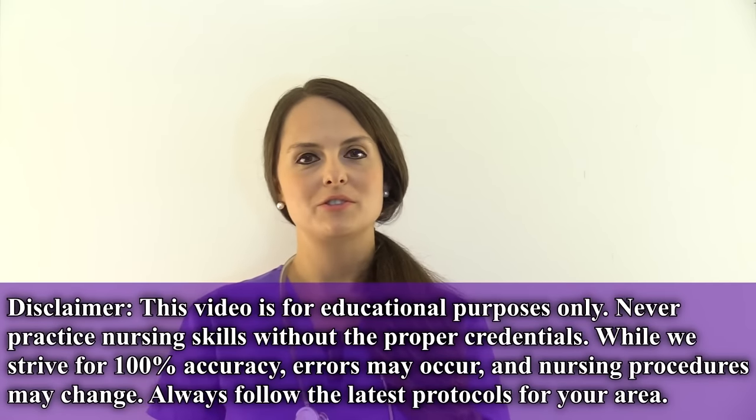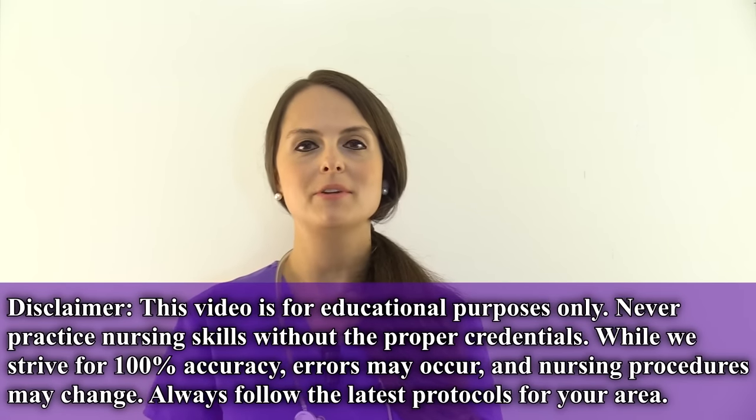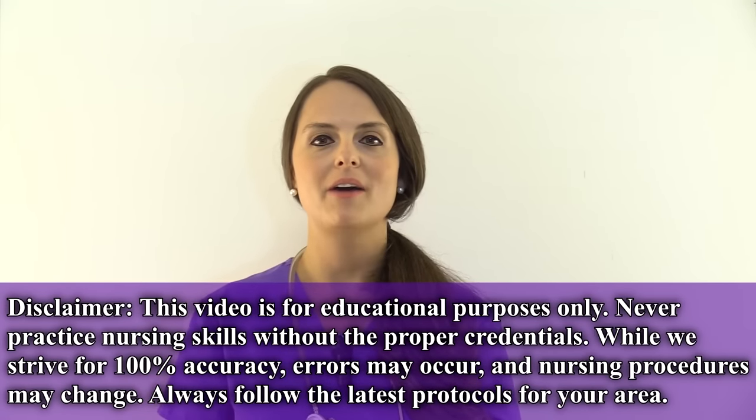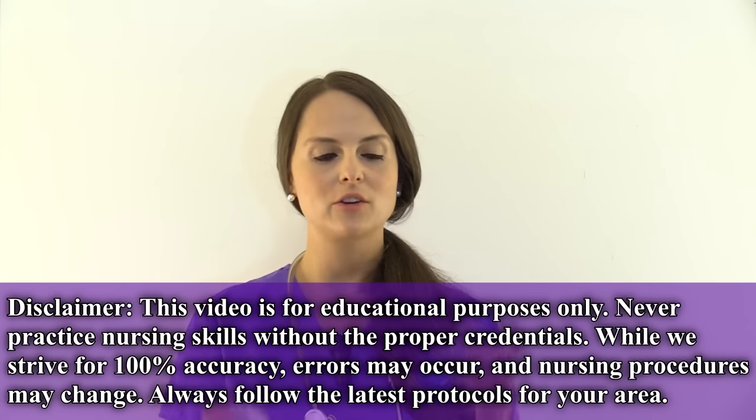Hey everyone, this is Sarah with RegisterNurseRN.com and in this video I'm going to demonstrate how to use a metered dose inhaler with a spacer.